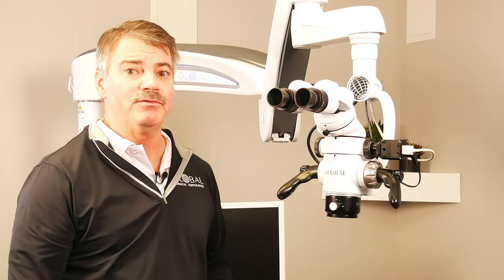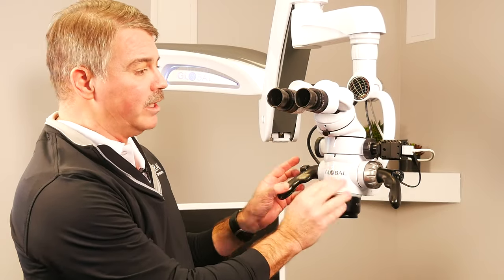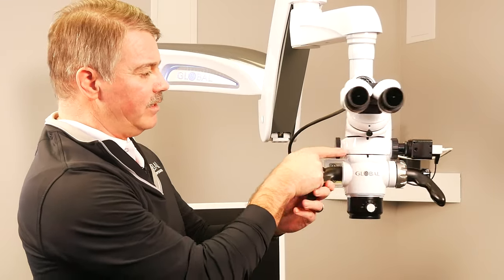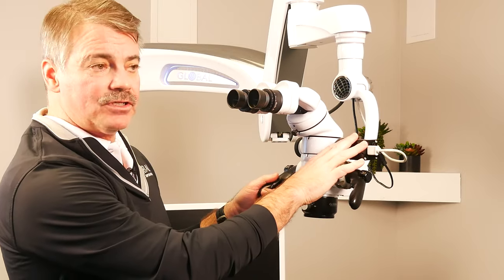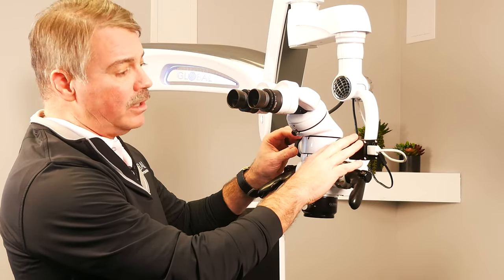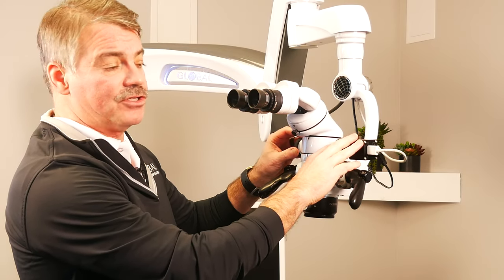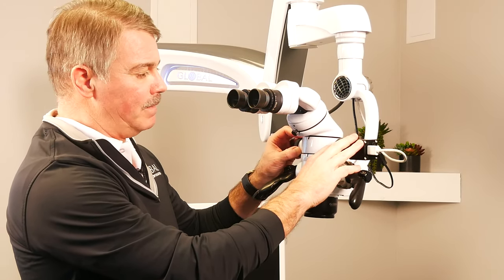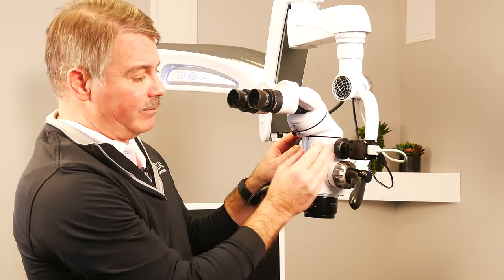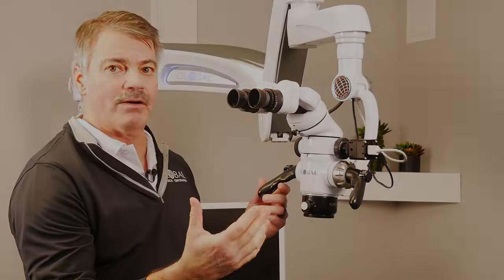One other note on the beam splitter is it can come in a single port or a dual port. A dual port, which we have here, would allow for a camera system and maybe a binocular observation system or a DSLR camera attached to the same microscope at the same time. A single port then is just one port that can be rotated from side to side depending on the doctor's dominant eye.